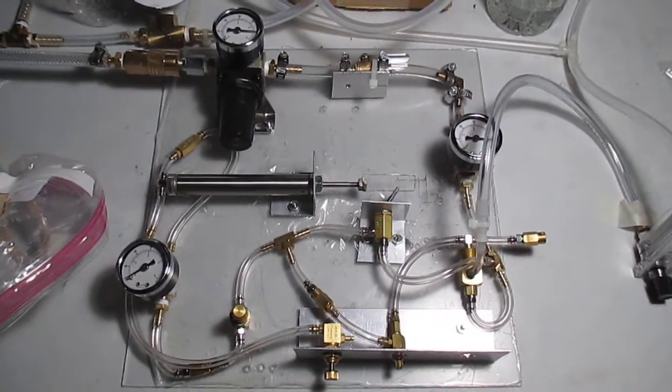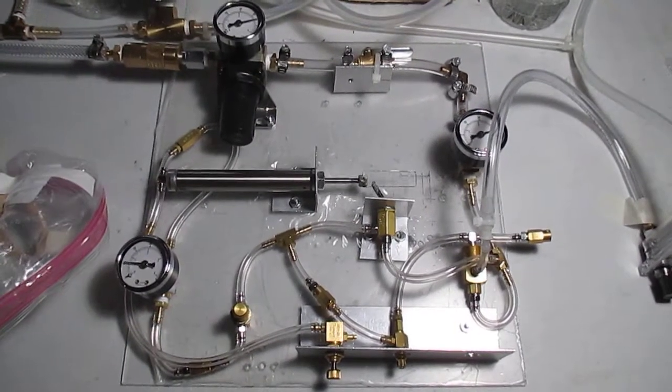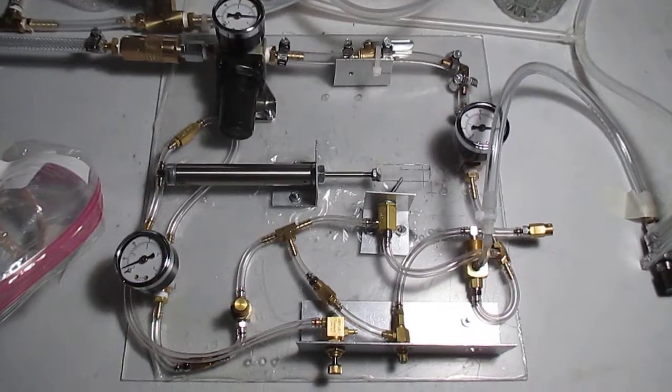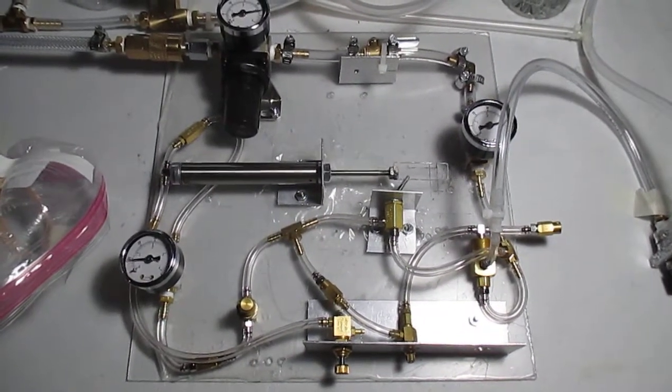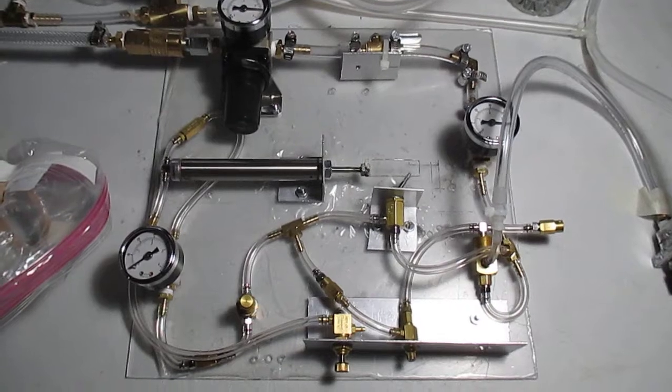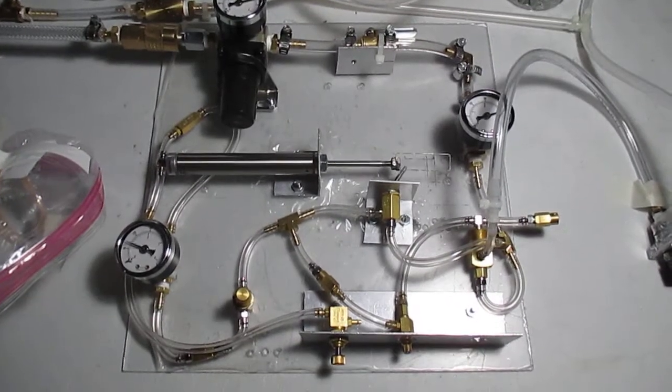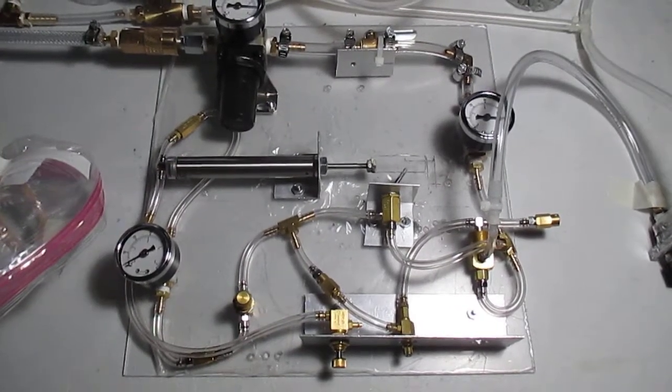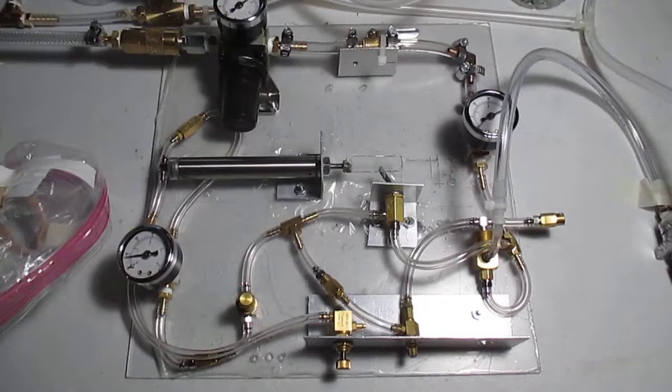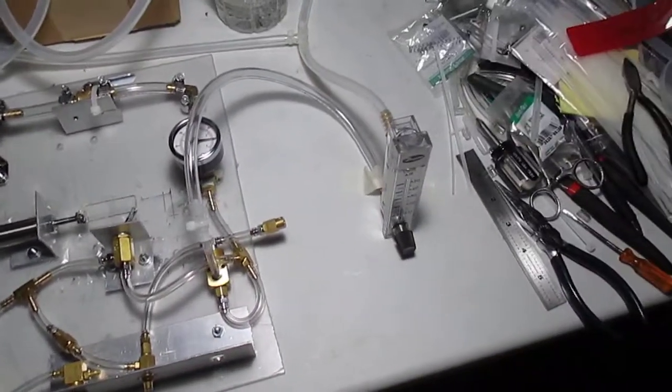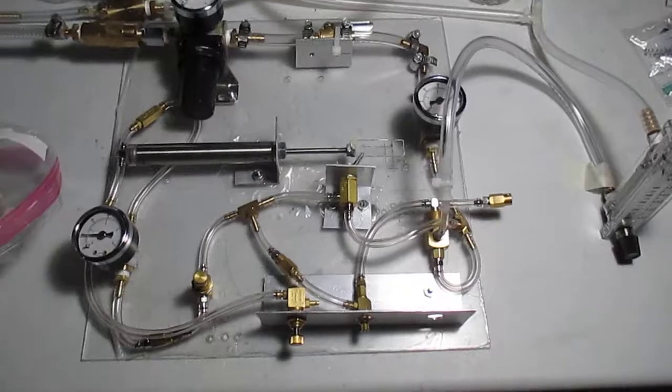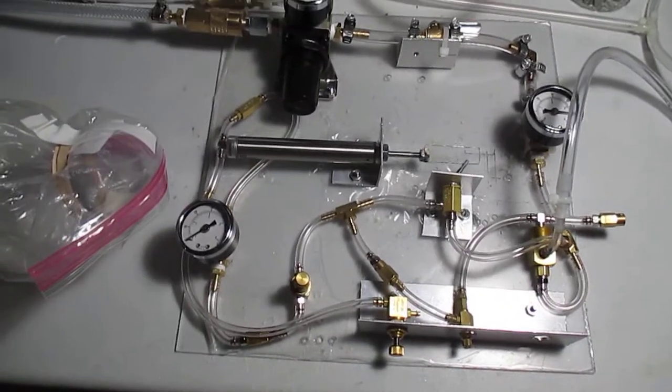This is the first of two videos intended to save lives by disclosing my invention for a portable gas-powered pipeline mounted patient ventilator with control circuit, flow control, breath timing and ratio.